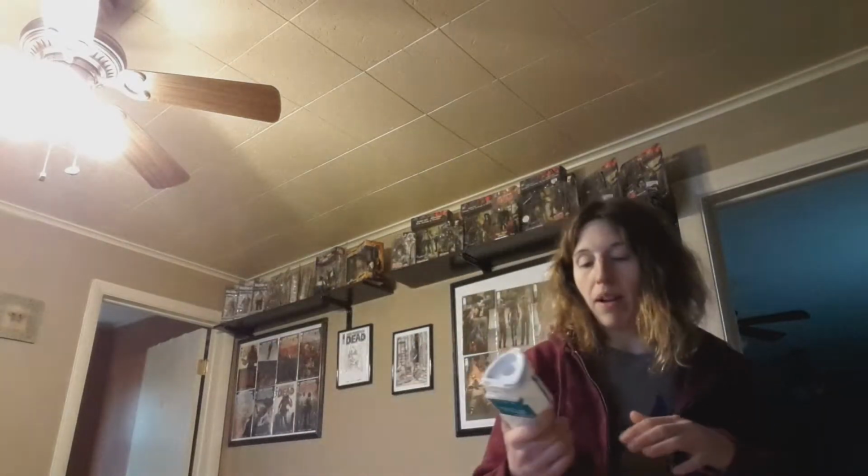At that point, and the parent is doing all of this, you want to have the parent take a look at the temperature on that cup while it's down, and that temperature strip right here, it should be between 90 and 100 degrees. If it does not read that temperature, then you want to consider the test invalid, and you would either give them another test, ask them to do it again, or you would consider it a dirty screen.